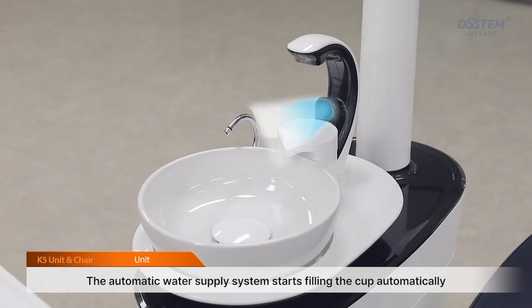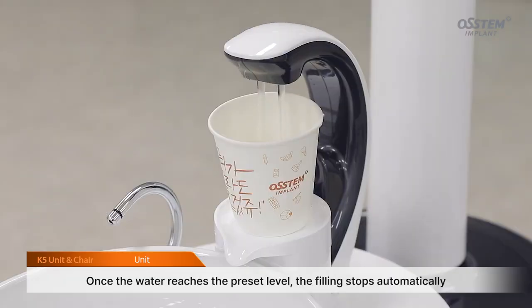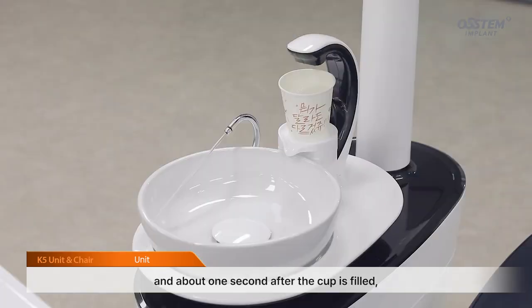The automatic water supply system starts filling the cup automatically when the sensor detects it. Once the water reaches the preset level, the filling stops automatically, and about 1 second after the cup is filled, the spittoon cleans itself automatically.